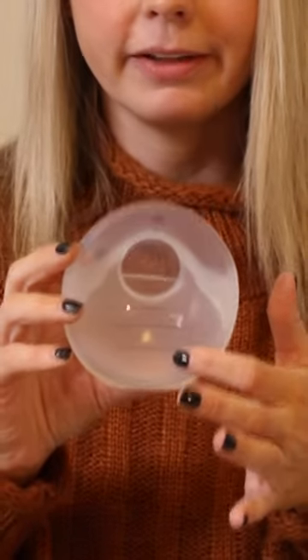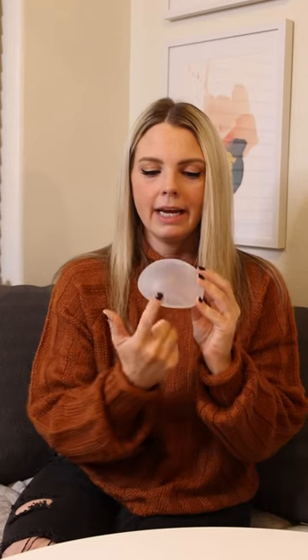I love this little thing — it's small and discreet, it's 100% food grade silicone, and the volume markings are clearly labeled, making it super easy to pour your milk out. I haven't had an accident yet. It has a nice flat bottom so it sits flat on a surface, sits discreetly in your bra, and your baby can't kick or knock it off. Highly recommend — let me know if you have any questions.